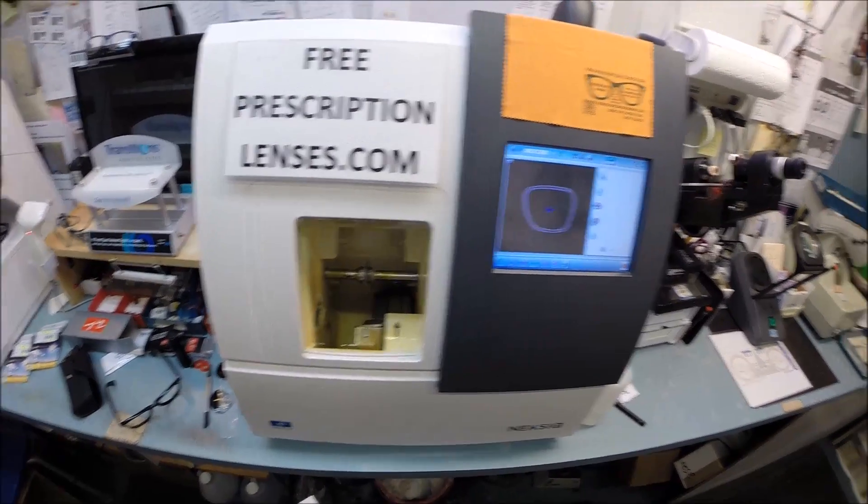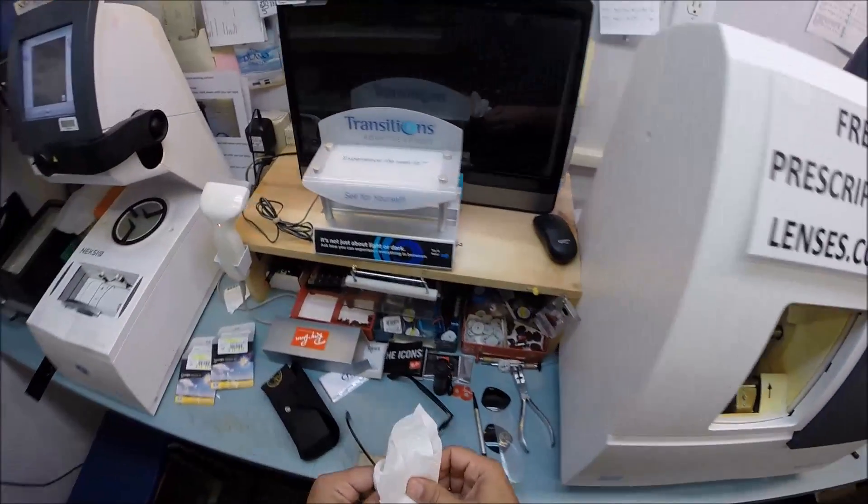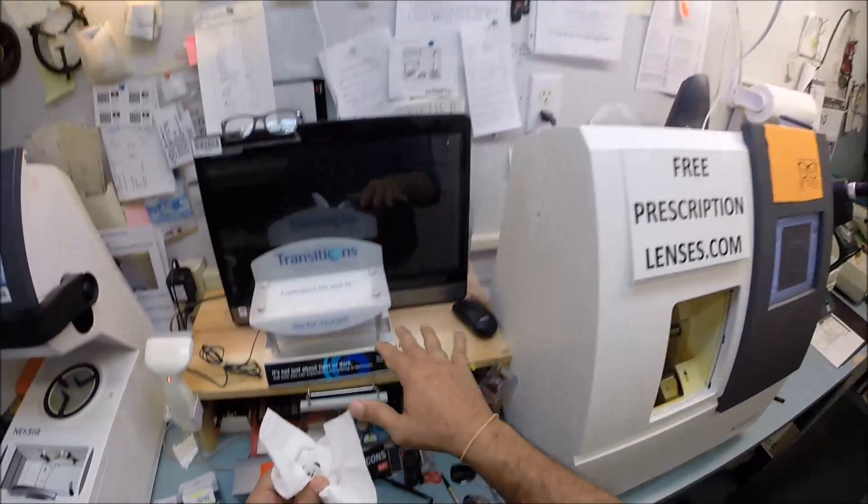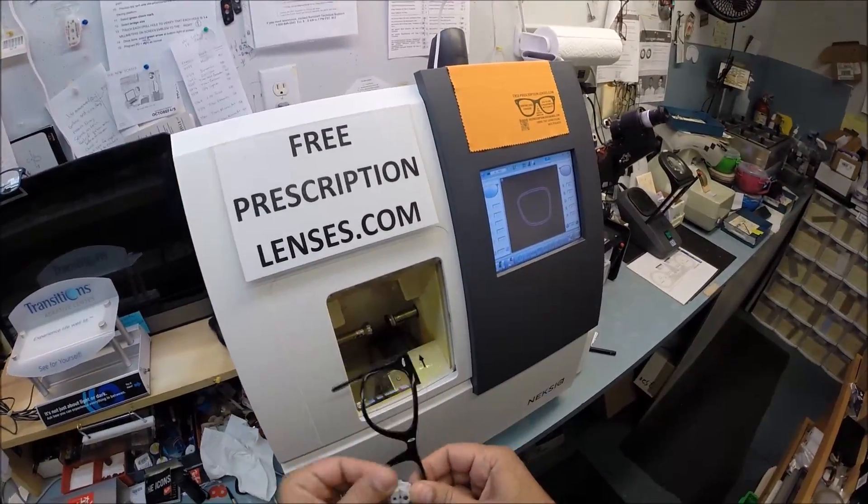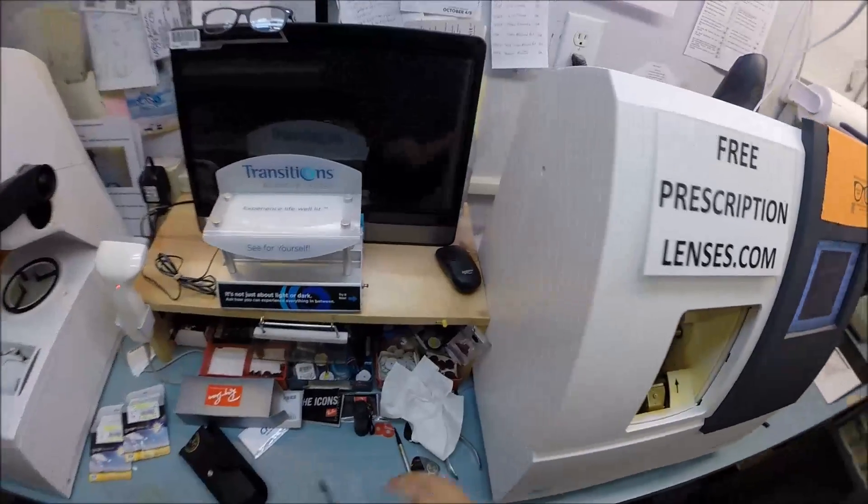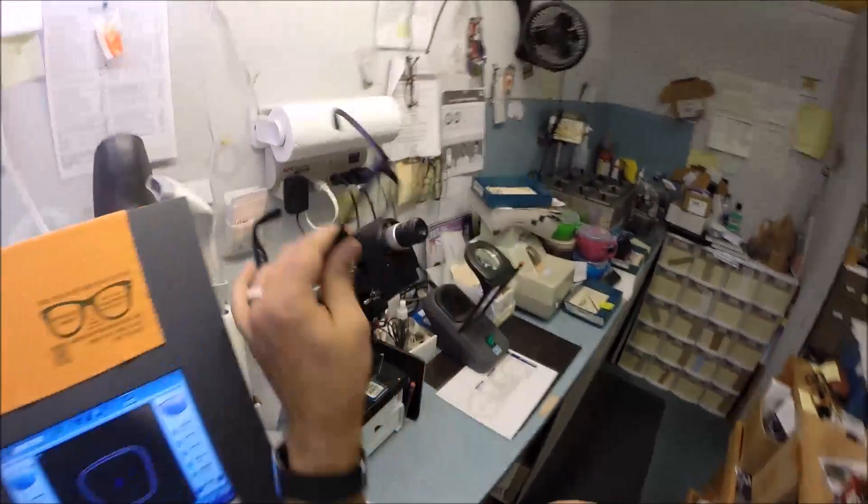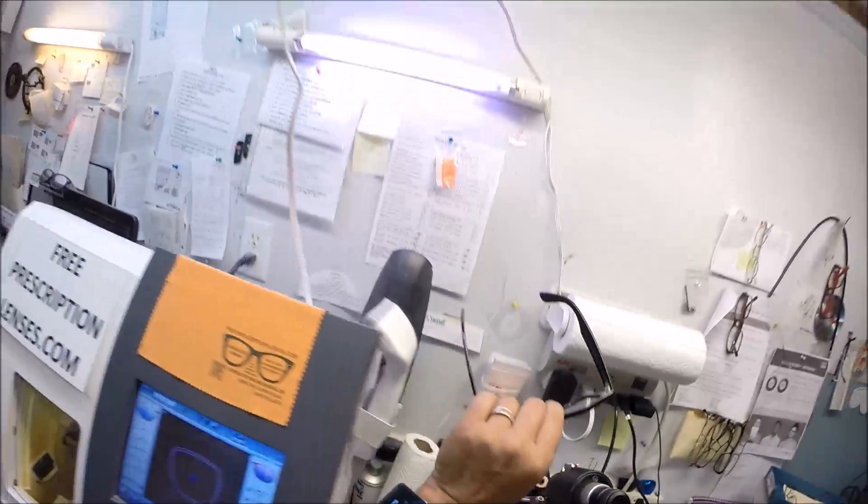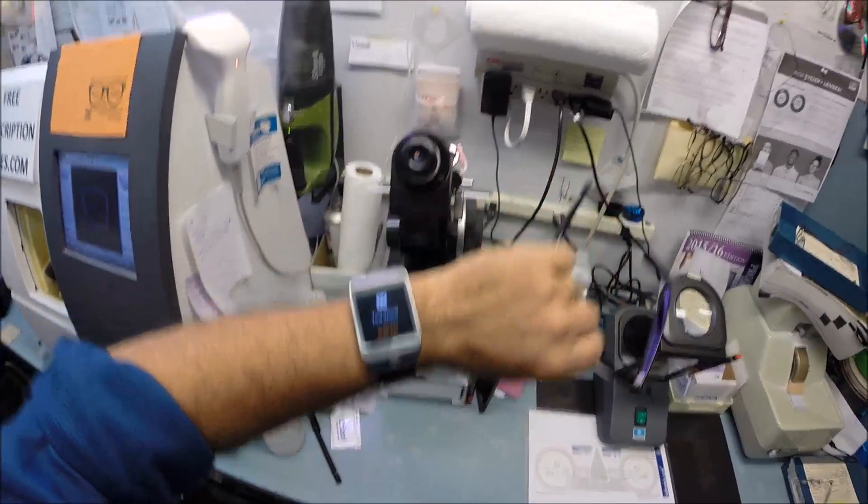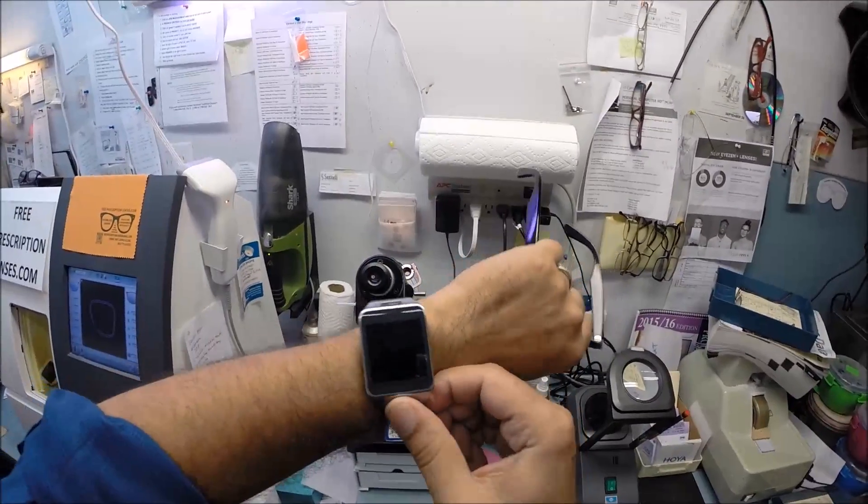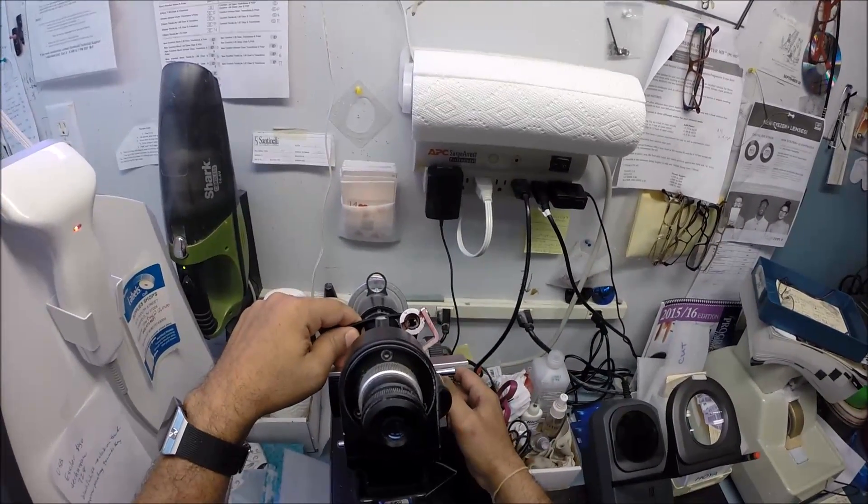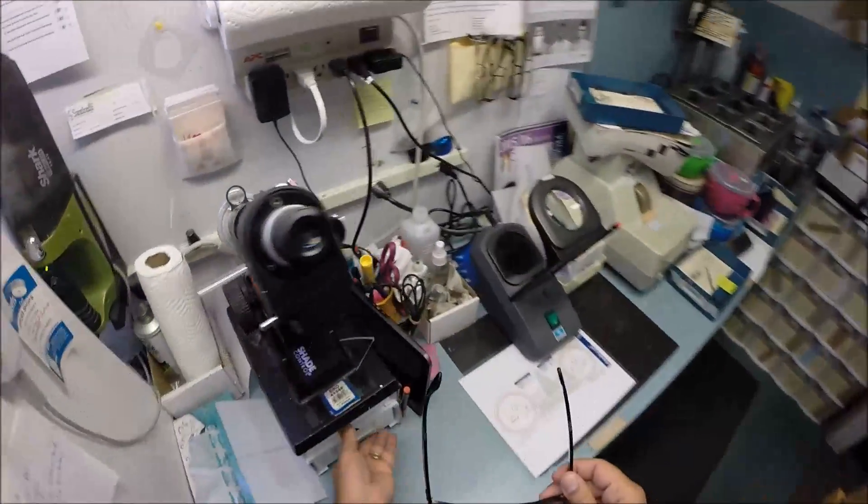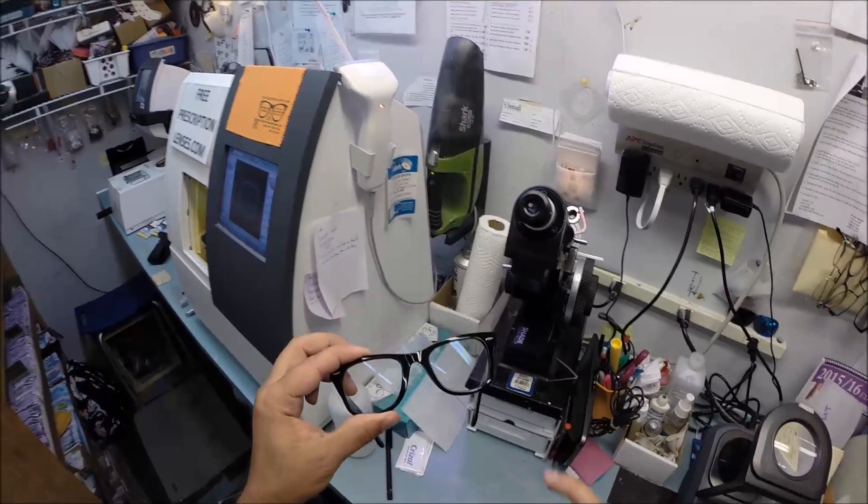In just a moment I will take this lens out, dry it off, and we'll see if the left side fits perfectly. Cory this time I want you to open the door with your mind. Tuck the left lens in the outside corner first, using my thumbs press down at the nose, it snaps right in. I would inspect these to make sure that they're the correct prescription. Zero zero power, coincidentally that's how much you pay for your lenses too.